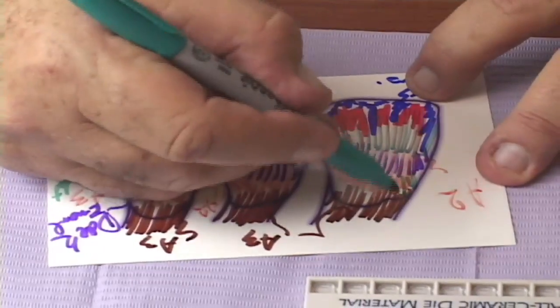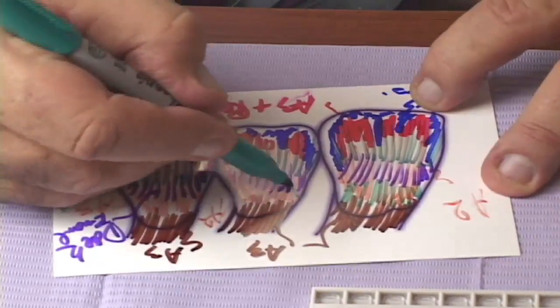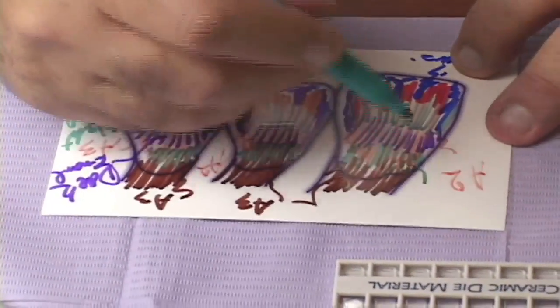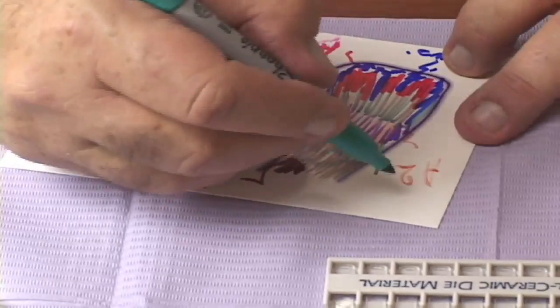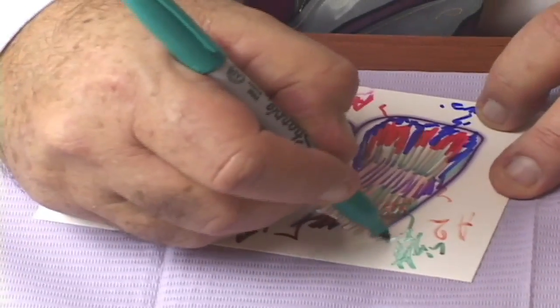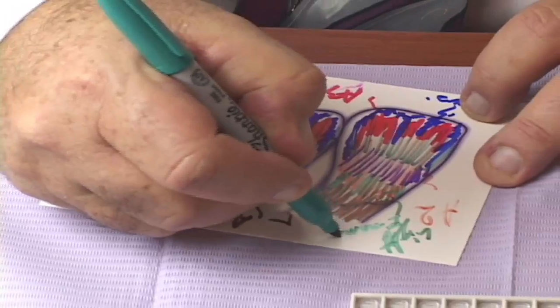At the height of contour of each tooth, we often see that the enamel has a thicker enamel zone in those areas. We mark it again with white enamel, but we want to elevate the brightness or the value, so we say it's a light enamel plus white.